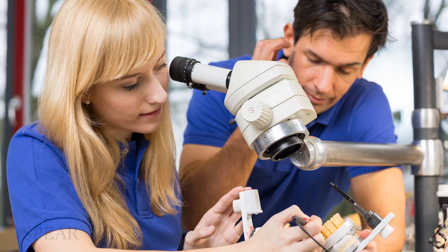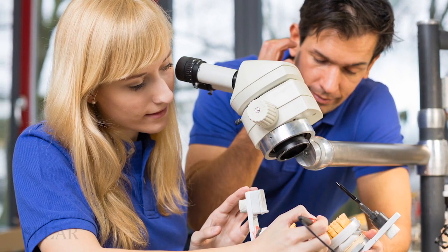So I hope that clears up some of the mystery around abutment selection. One of your best resources is your implant rep and your laboratory. Because it's really difficult to sort through all the hundreds of choices, it's best to go to the source and talk to people who use them every day and are most familiar with their applications. If you're working with a great laboratory that does a lot of implant-retained restorations, they can help you choose abutments, and your implant representative should be well trained to help you do the same.